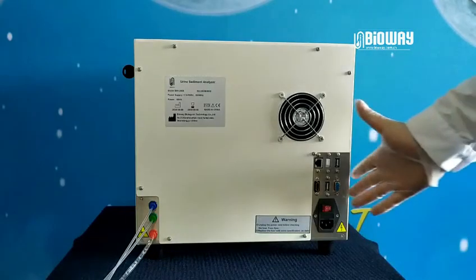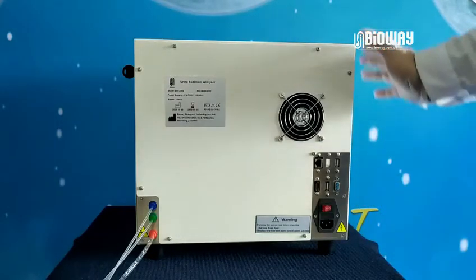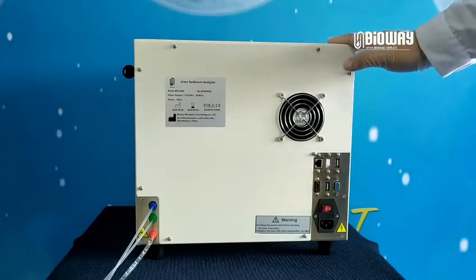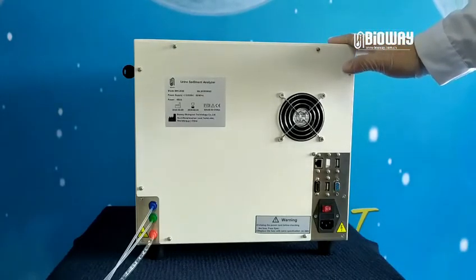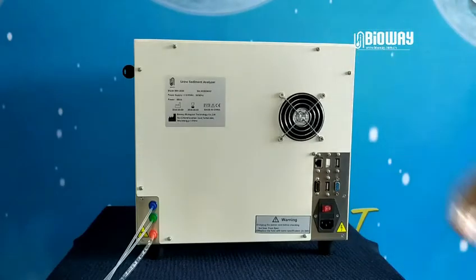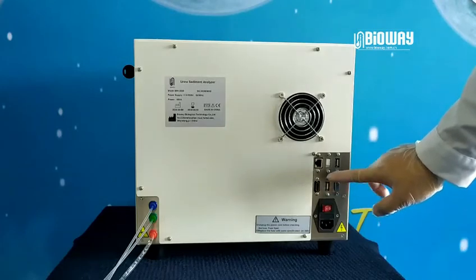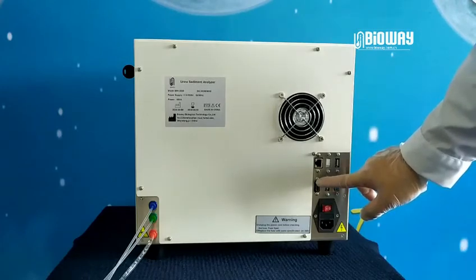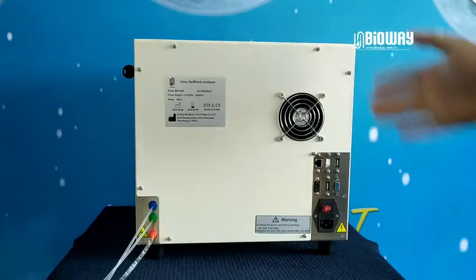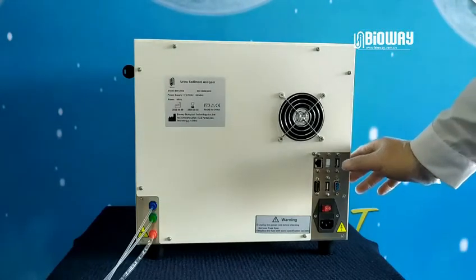On the right side, there is an interface area. Particularly, BW2000 has a main processor unit, which is regarded as a computer host. Therefore, the PC monitor can directly connect to BW2000 via this HDMI interface. Some other external devices like keyboard, mouse, and printer are able to link to this analyzer by USB port.